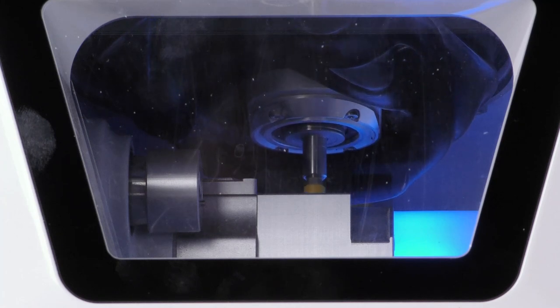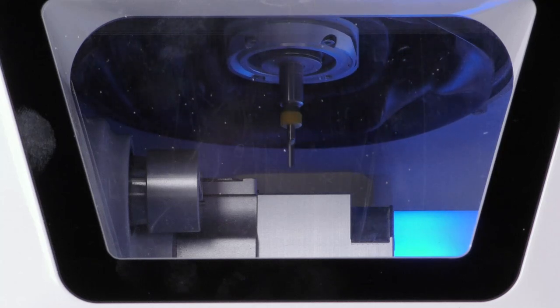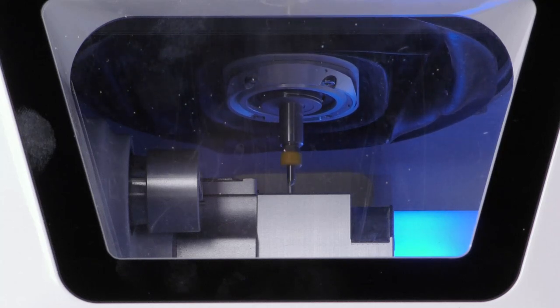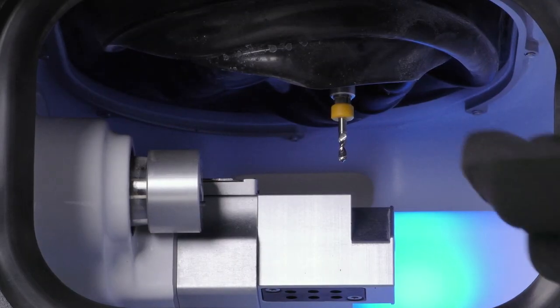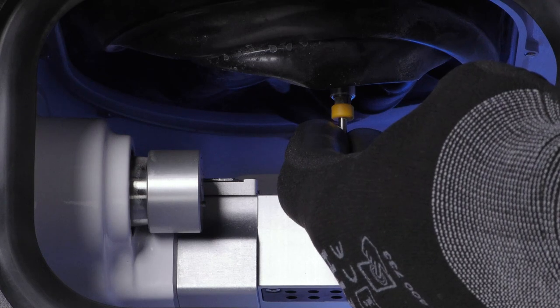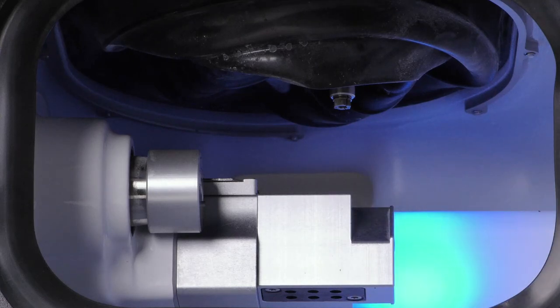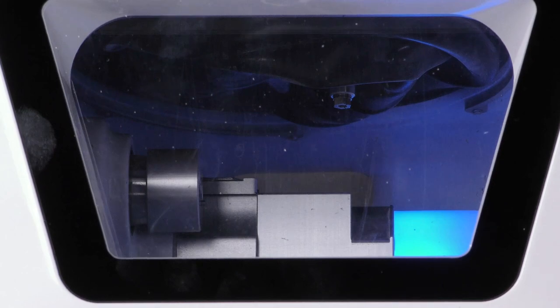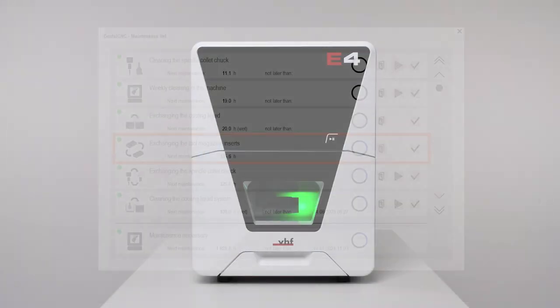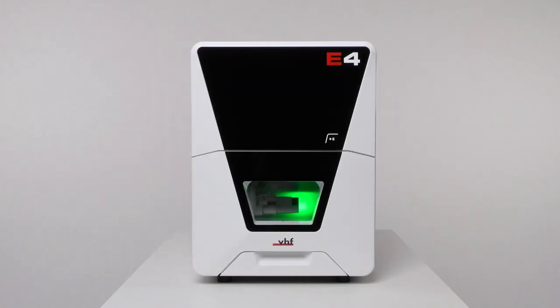Dental CNC shows the progress in the current window. After the drilling process is completed, the spindle moves to the tool change position and an on-screen guide opens. Open the working chamber door, hold the tool in the collet chuck in place, and confirm the current message. The collet chuck opens. Remove the tool from the collet chuck, confirm that the collet chuck is empty, and close the working chamber door. Mark the task as complete in the maintenance section of Dental CNC — exchanging the tool magazine inserts — to keep the list up to date.